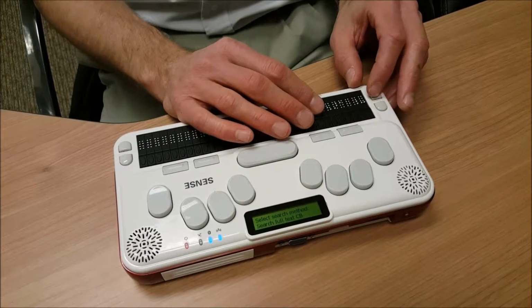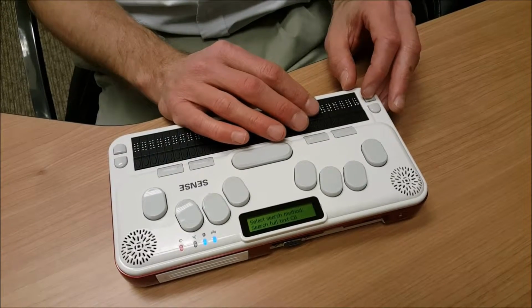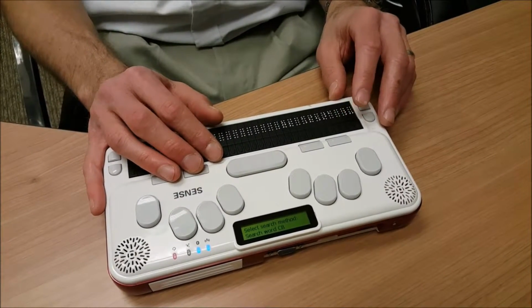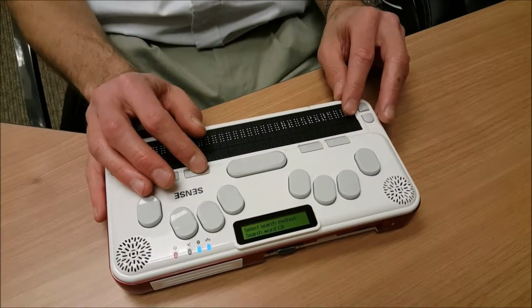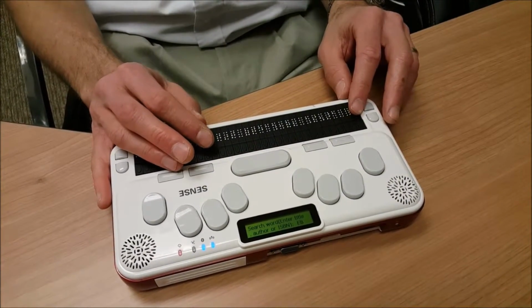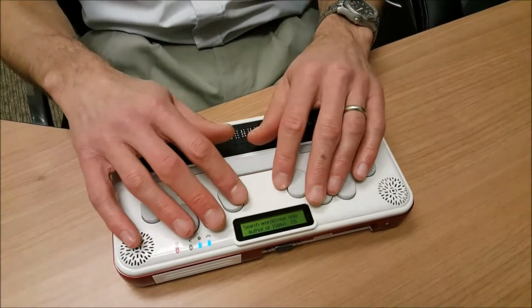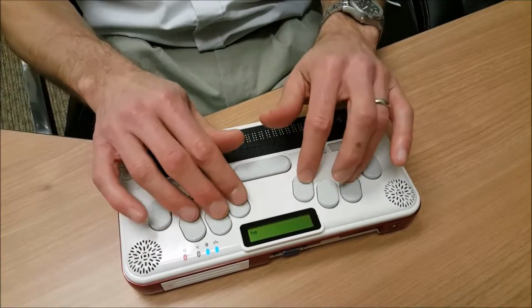I'm going to scroll back around to search by word. Search word. Combo box. And now that I have selected how I want to search with Bookshare, I can press my Tab key or Function key 3. Search word. Enter title, author, or ISBN. Edit box. And as the BrailleSense U2 has announced, I can search by title, author, or ISBN. Since I happen to know that there are a lot of Harry Potter books on Bookshare, no big surprise, we'll simply type in Harry Potter.